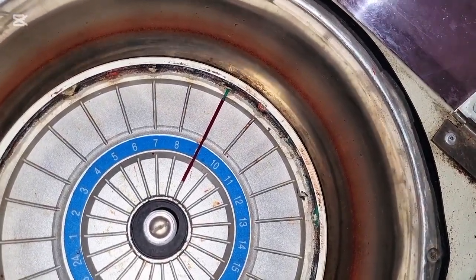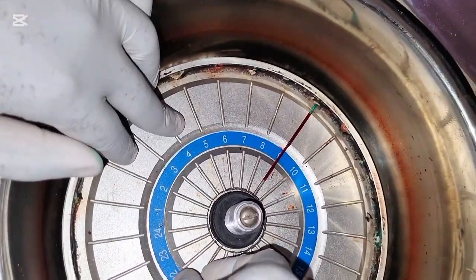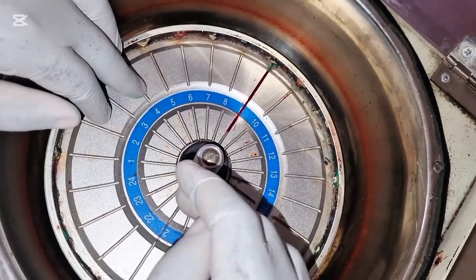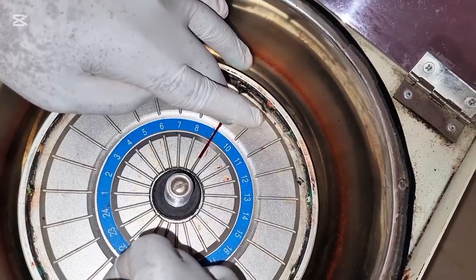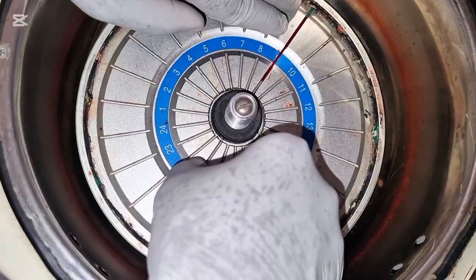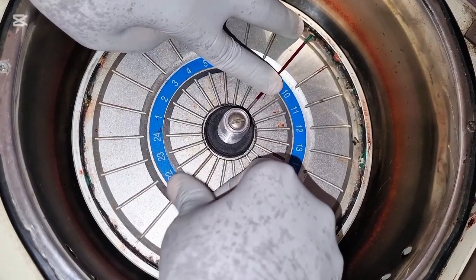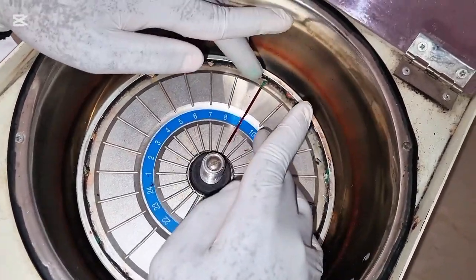Now, this is a centrifuge, so you have to balance the weight. And how do we do that? By putting another capillary tube at the other side, even if it's empty. Assuming you have 2 PCV to carry out, you can put them at opposite direction. But because we are doing just one, we'll put this empty capillary tube at the opposite direction to balance the weight of the capillary tube in the centrifuge to avoid spoiling our brush or breakage of the capillary tube.